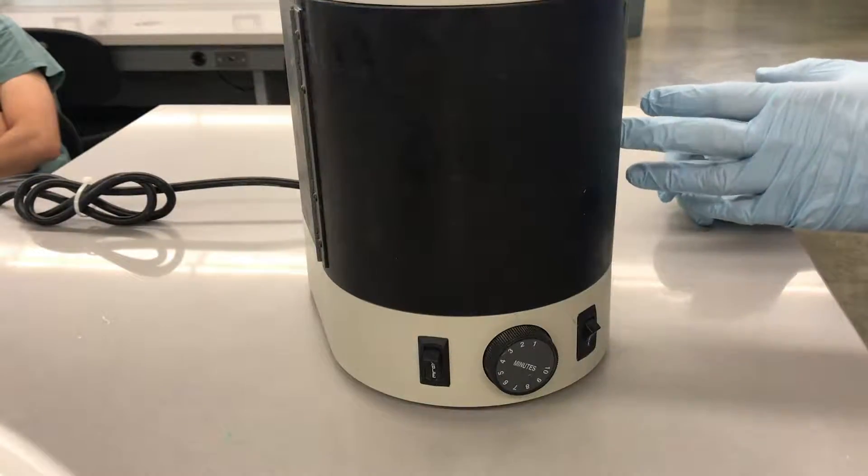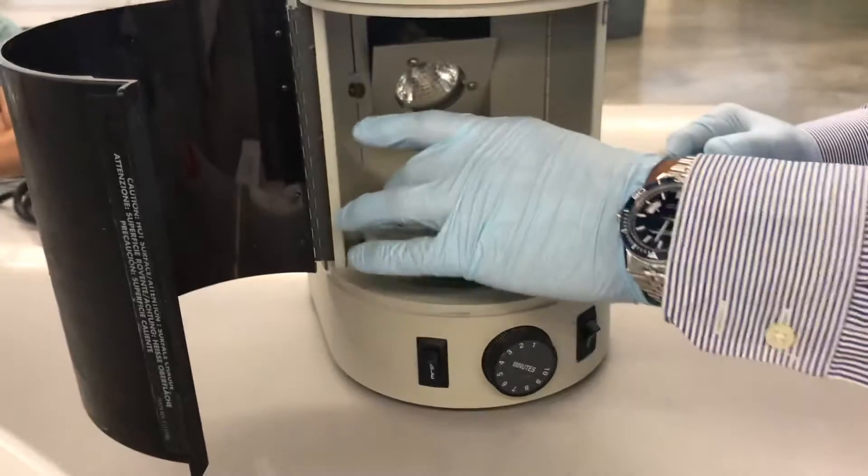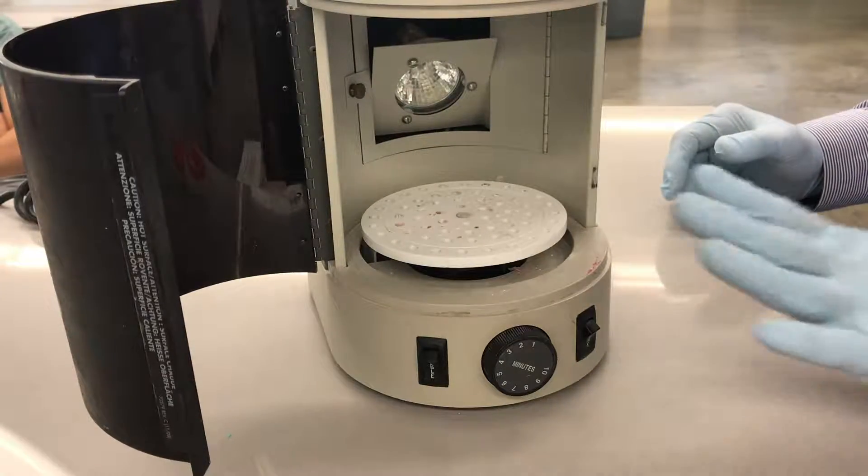So I'm going to close the door. Actually, before I do that, I just want to show you guys a safety feature on the unit.